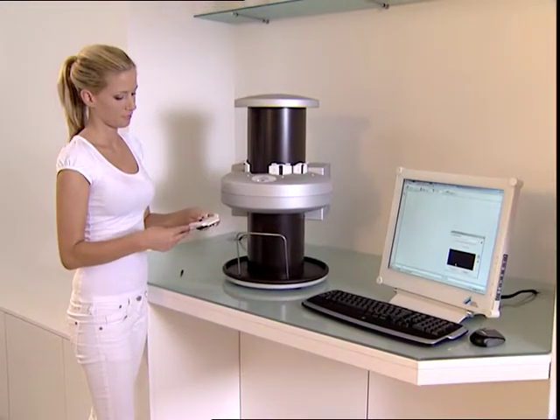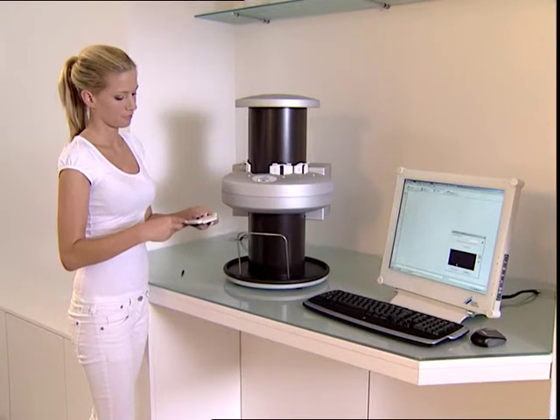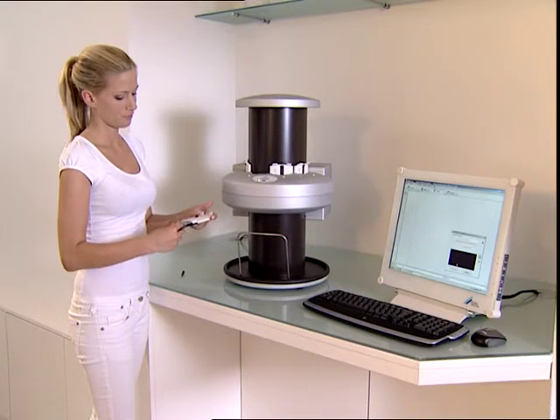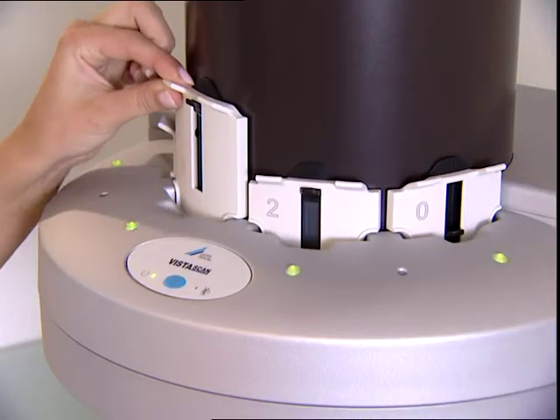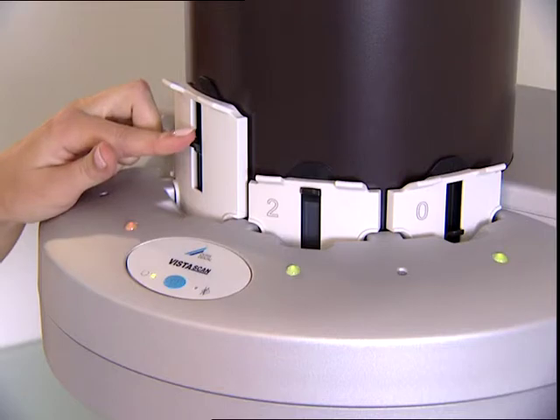With its flexible and very thin image plate, this system offers a high level of comfort for the patient. The wide exposure tolerance is very forgiving with regard to under or over exposure of the x-ray image.